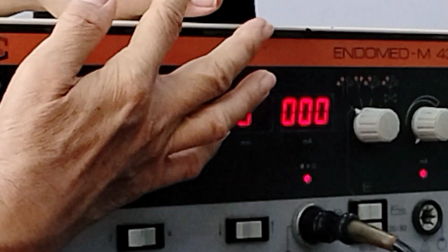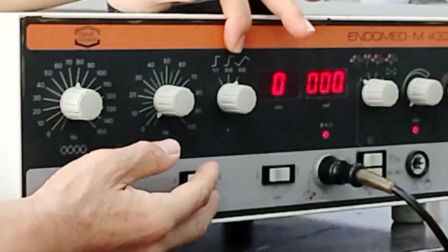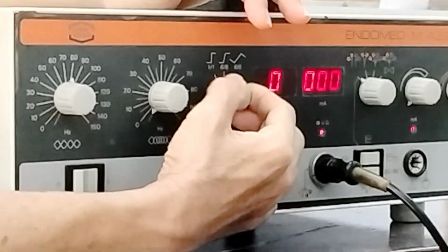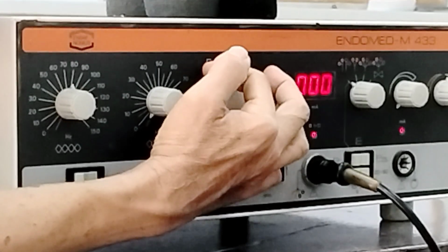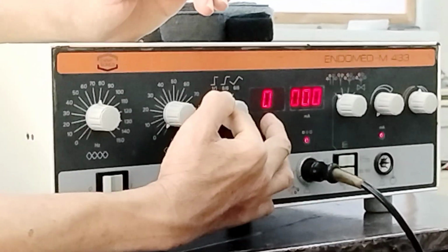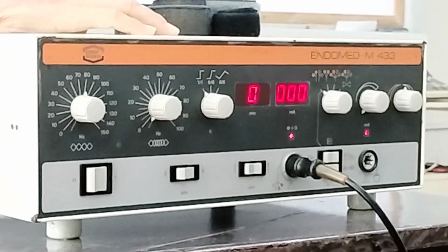So in this modality, you have 3 spectrum programs. For these 2, we have 6 spectrum programs. So depending on the modality. Okay. So we're going to discuss this first. So we have these 3. If we're going to have this on the leftmost, we have the value 1:1, and the symbol there is more rectangular. So we're going up and straight. So what does 1:1 stand for?